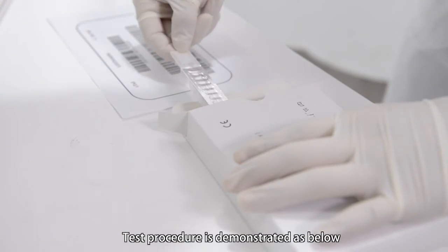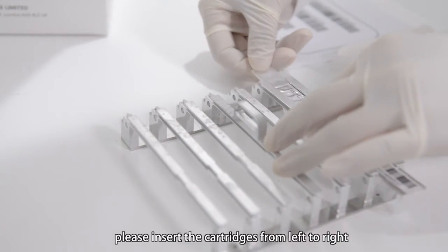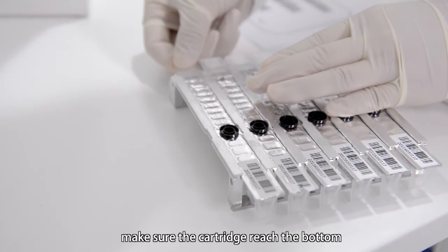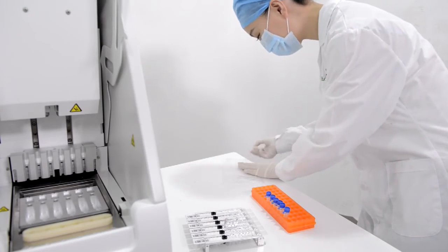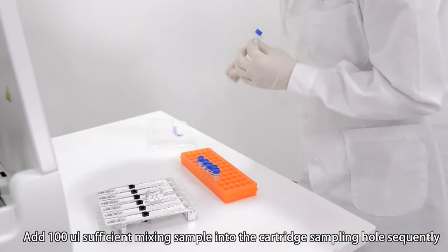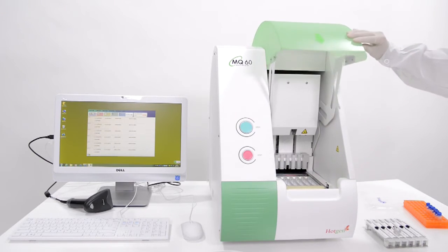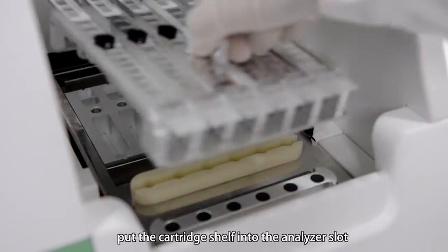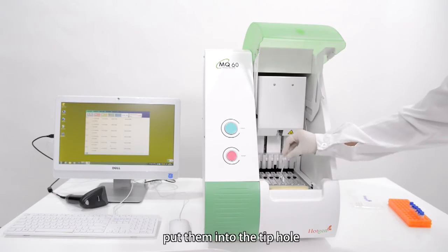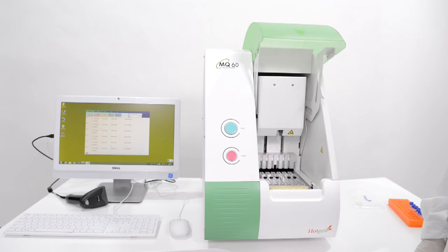The test procedure is demonstrated as below. Open the test kit. Put the test cartridge into the cartridge shelf — please insert the cartridges from left to right with channel numbers 1 to 6, and make sure the cartridge reaches the bottom. Add 100 microliters of sufficiently mixed sample into the cartridge sampling hole sequentially. Open the analyzer cabin, put the cartridge shelf into the analyzer slot, take out the tips from the tip box, and put them into the tip hole.